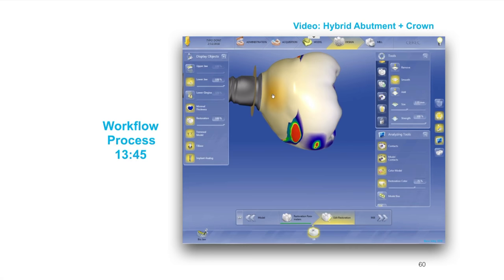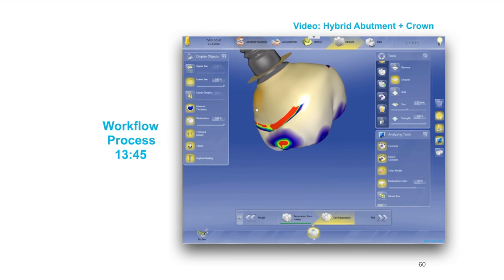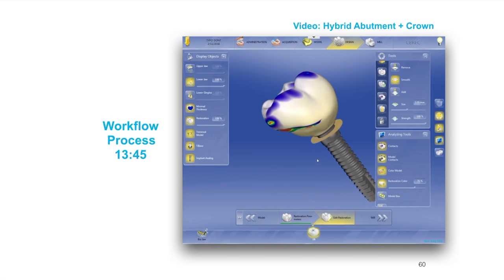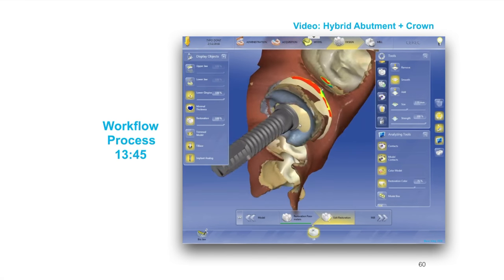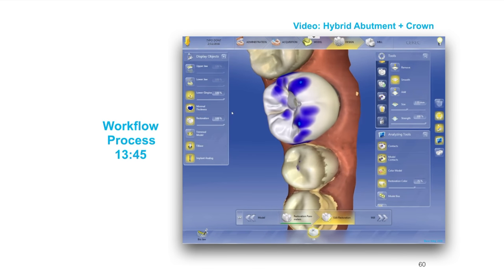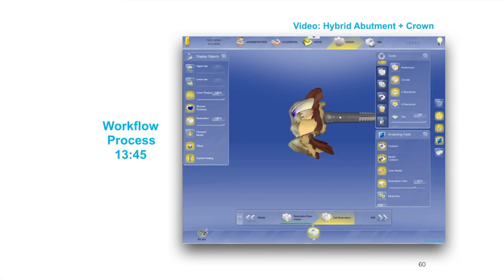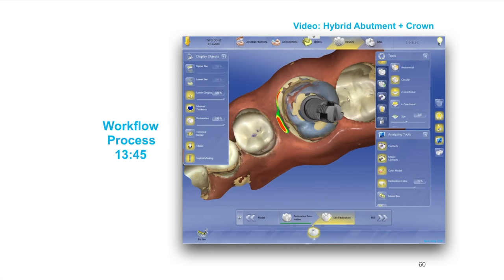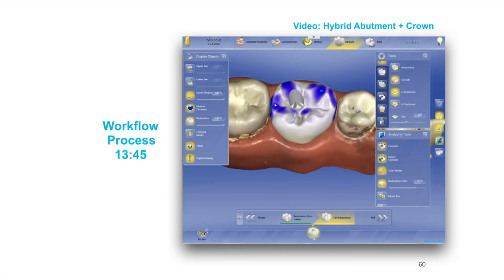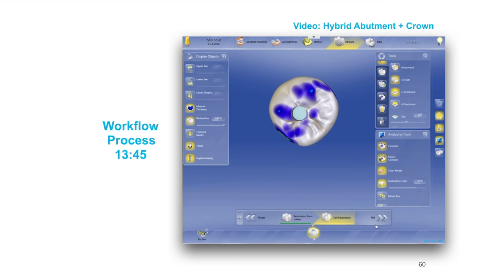I'm going to go to smooth and you see all these weird lumps — I'm going to smooth those out because they basically followed the contour of the typodont, which was a little jagged. Ideally with your patients and their natural gingival tissue healing and healing abutments in place, this will already be smooth. That's when the gingival mask becomes really critical because it'll tell you where that contact is. I can see we've got a little gap — I don't like gaps. I'm going to use the circular shape tool to pull that gap closed. If you have a gap between your restoration and the patient's gingiva, that's a recipe for a failed implant. You want a positive, not too tight, tissue cuff to prevent bacteria and plaque from getting down between the restoration and the gingiva.